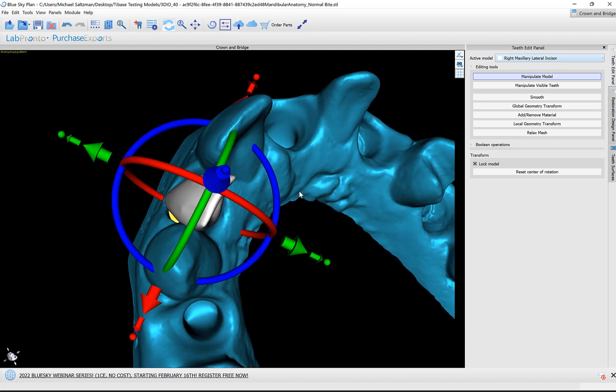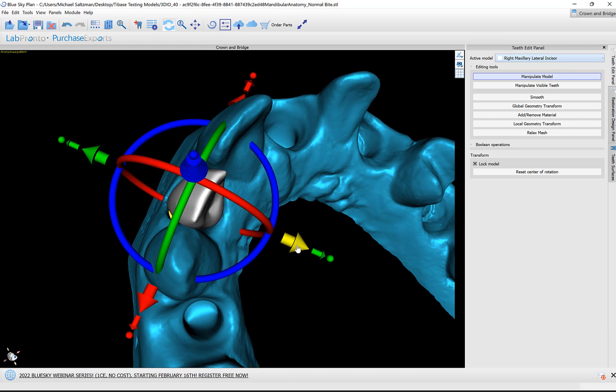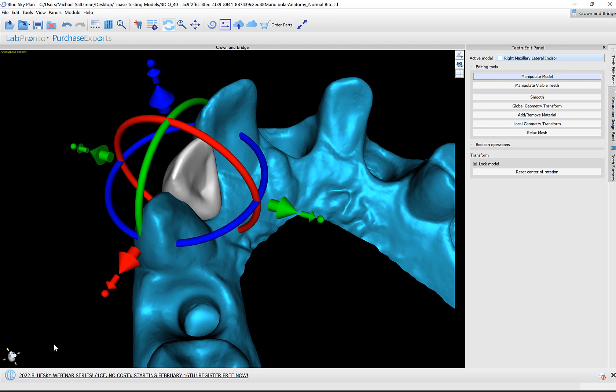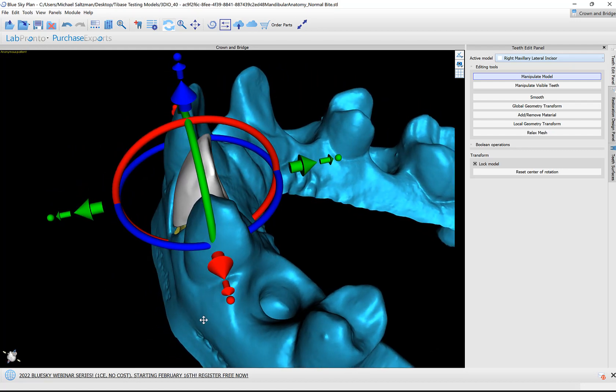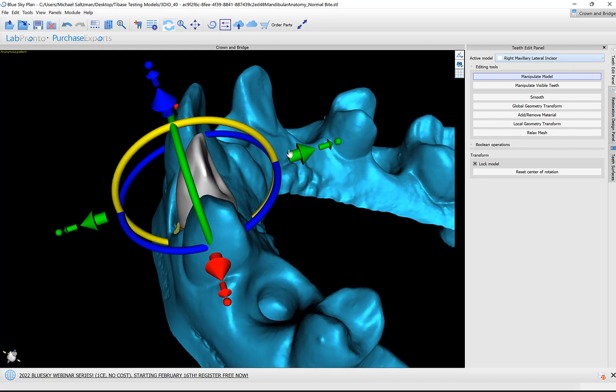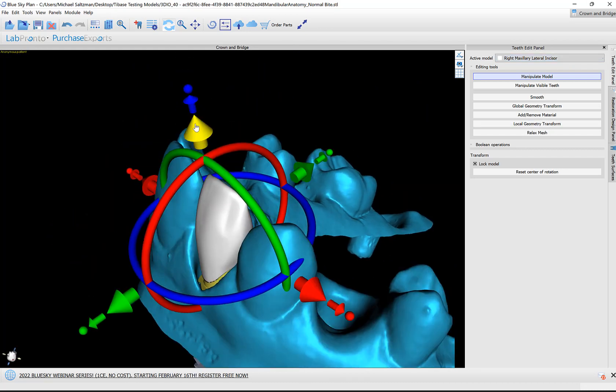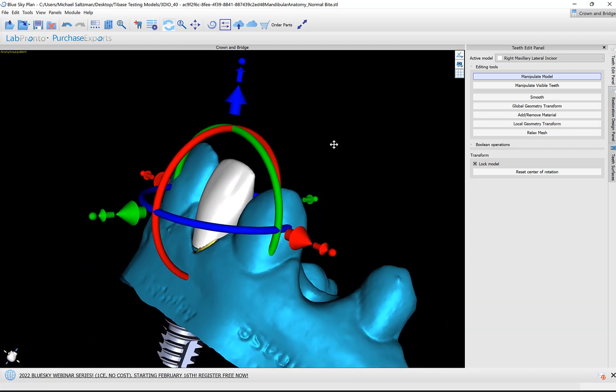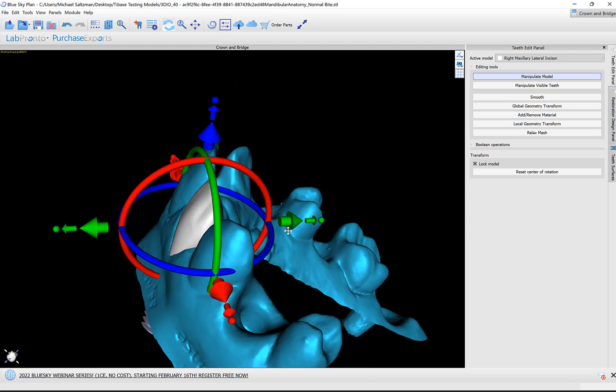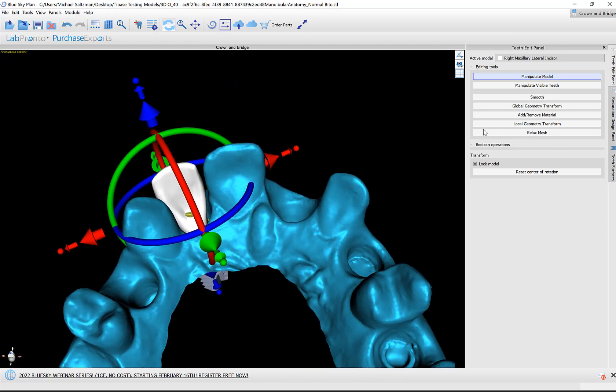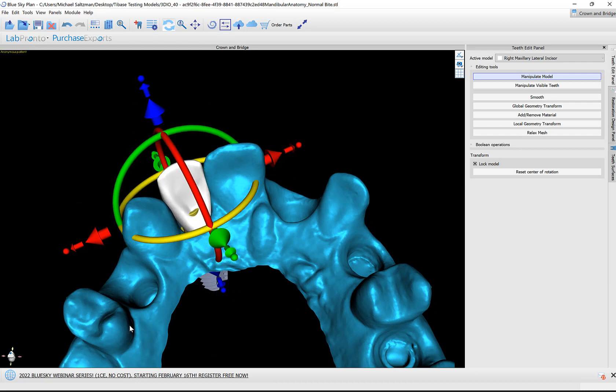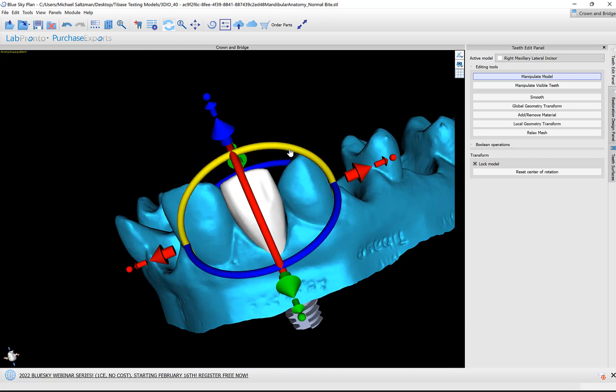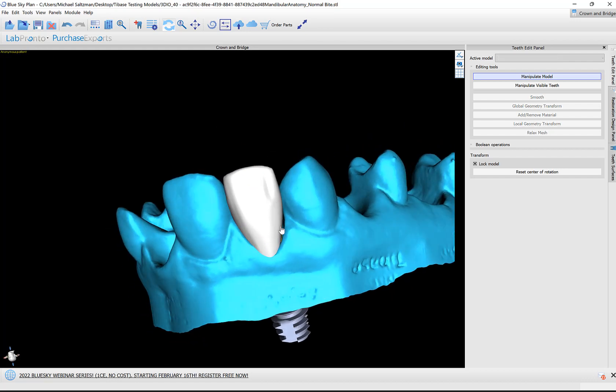Use our widget and our editing design tools to place and shape our crown. Resizing, rotating via the widget, very simple. Moving via the arrows, general resizing—just grab those nodes, those circles, and resize accordingly. We also have our editing tools. Let's go ahead and continue fine-tuning our design and placement here.